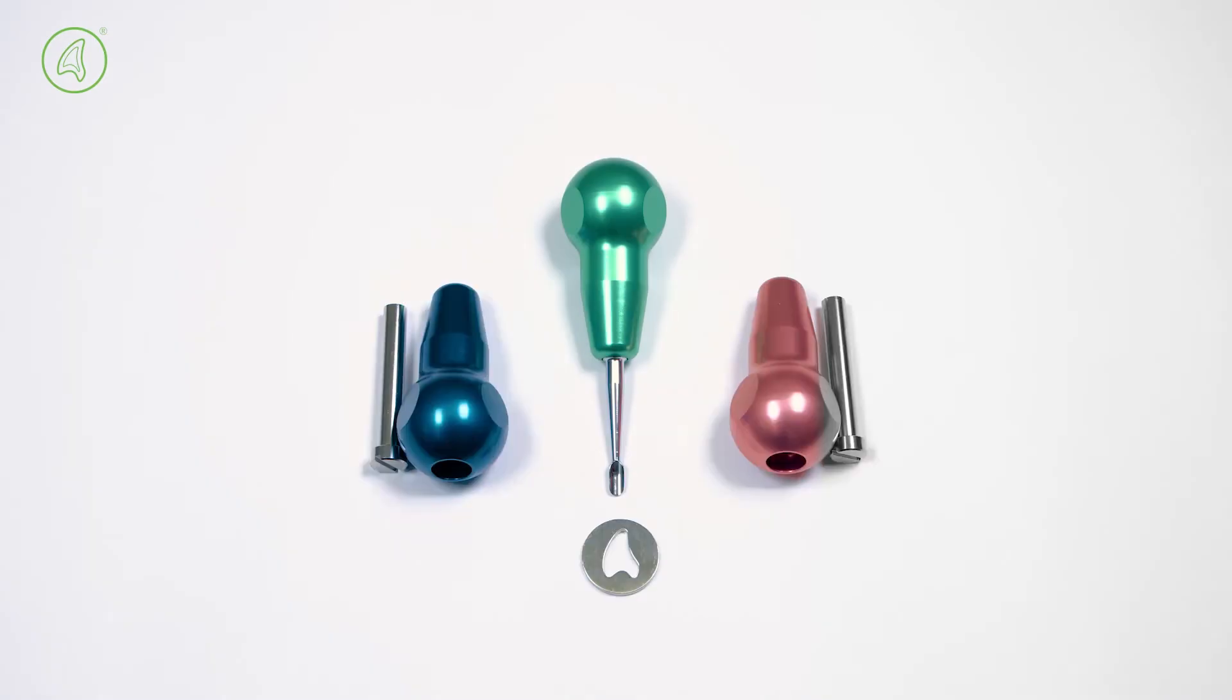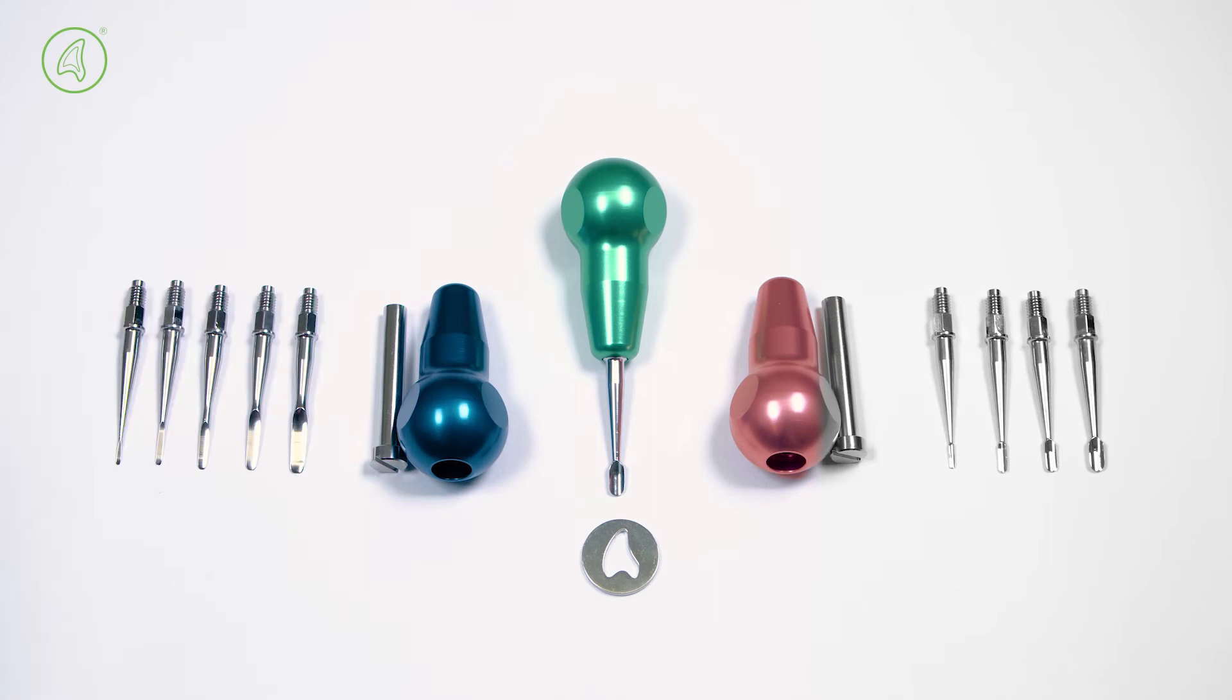Introducing Dentonomic's Modular Dental Instrument System with replaceable blades.